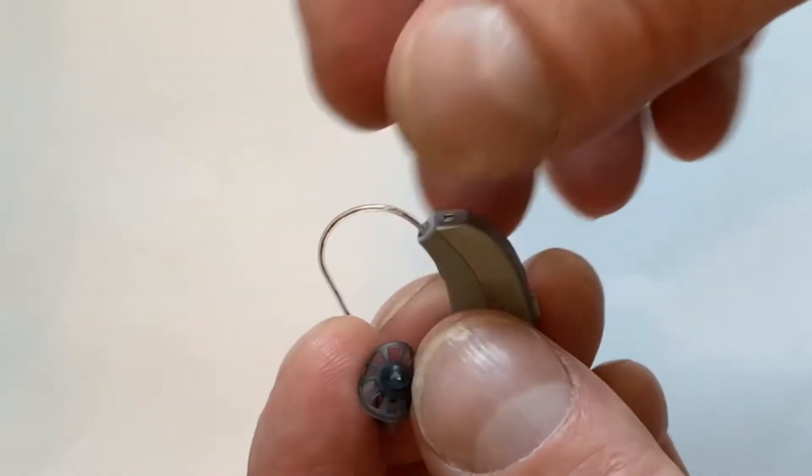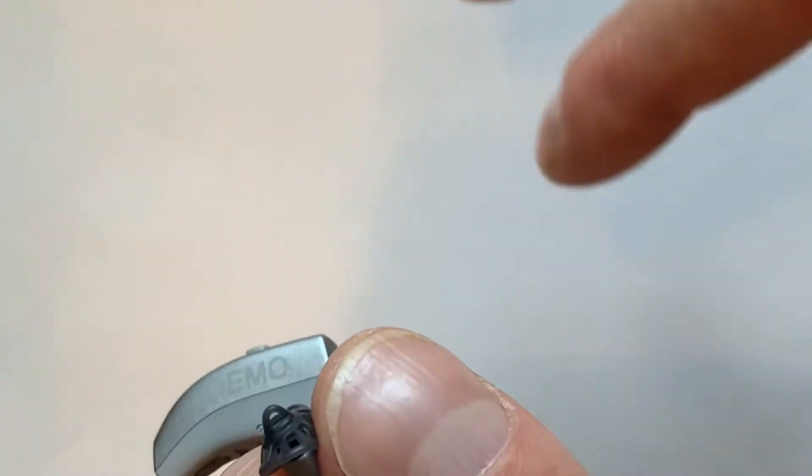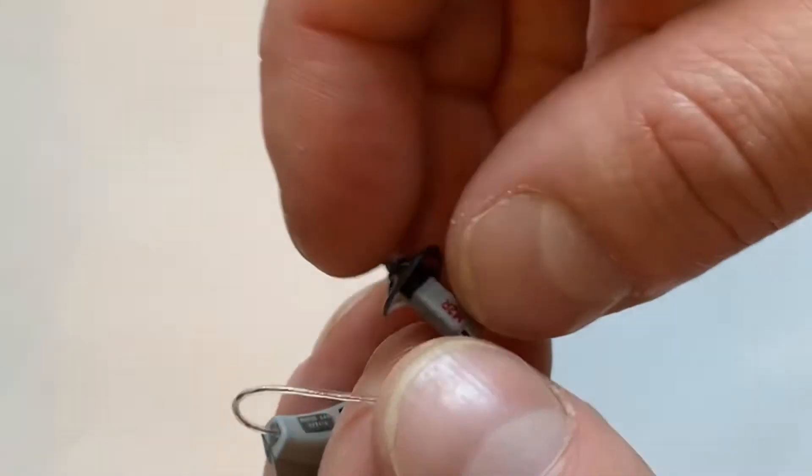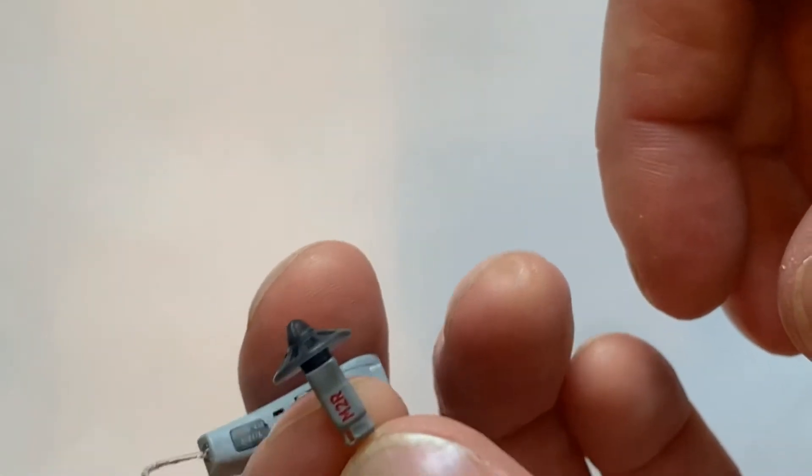But this is the same system that works with their Evoke, their Beyond, Unique, Dream, and Clear. This is the same system they've been using for a long time. It's a proven system. It works well and I suspect they're going to continue to be using it for quite some time.